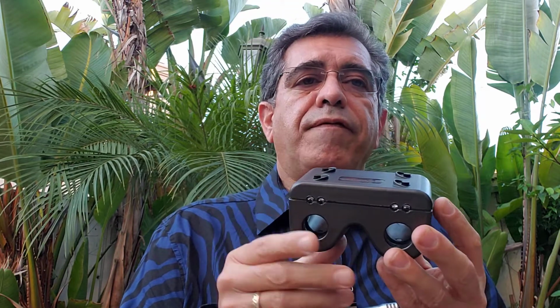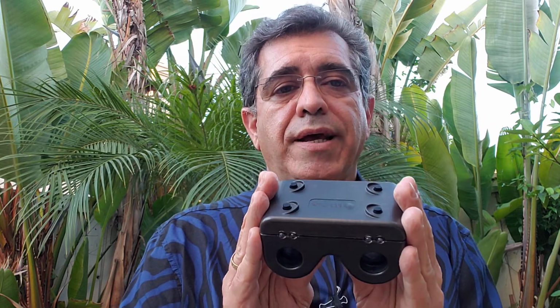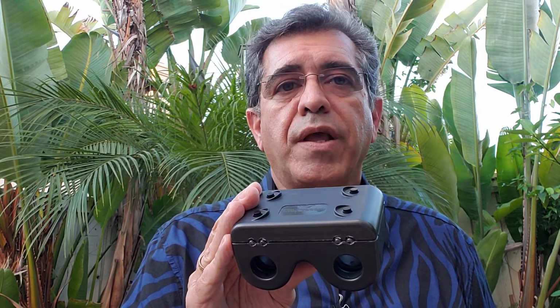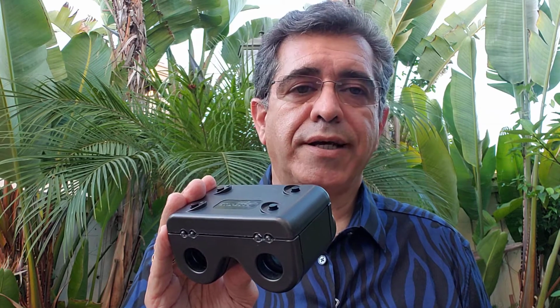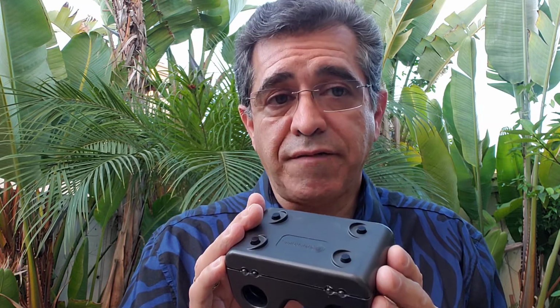It really does take 5 or 6 patients or trials to get a hang of this device. But once you do get it, it is a better way than the swinging flashlight test. In a study published in the Journal of Ophthalmology and Clinical Research, the APD tester was found to be more sensitive and reliable than using a pen light with the swinging flashlight test. The APD tester can also help quantify the amount of the APD defect.